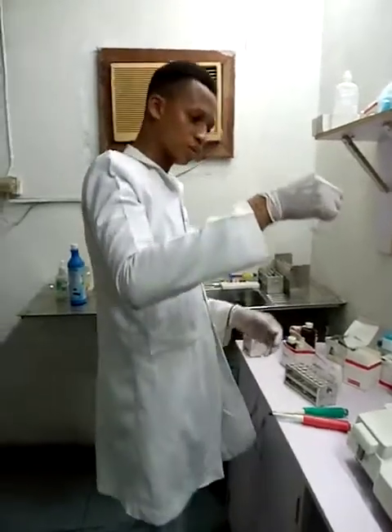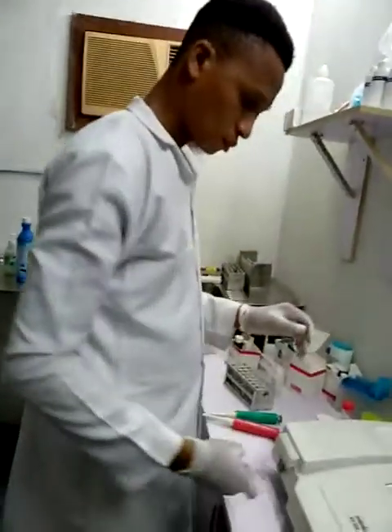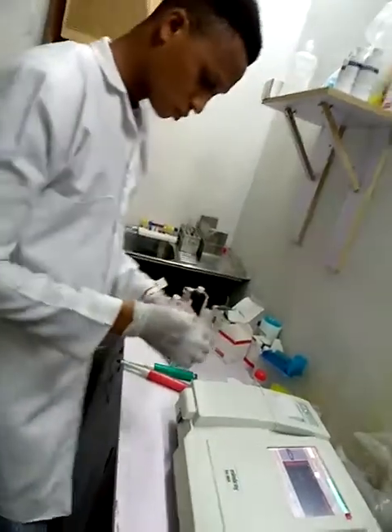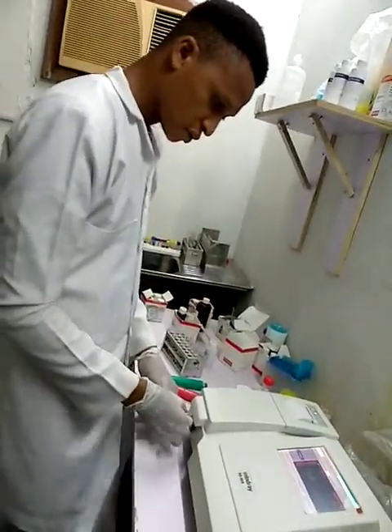Then I'll go to my sample and run my total cholesterol.